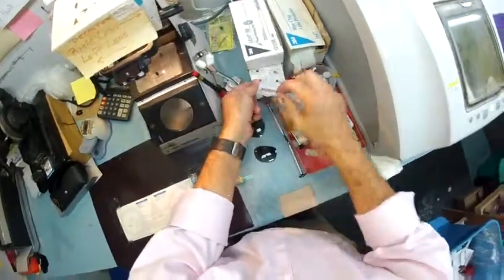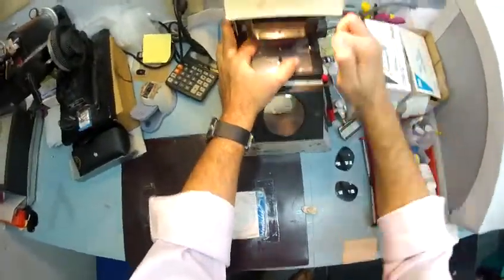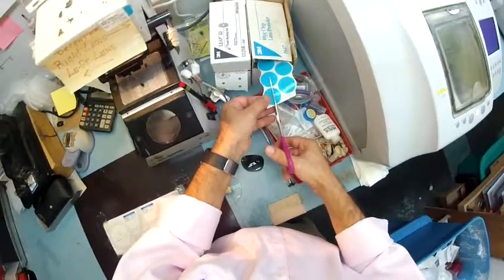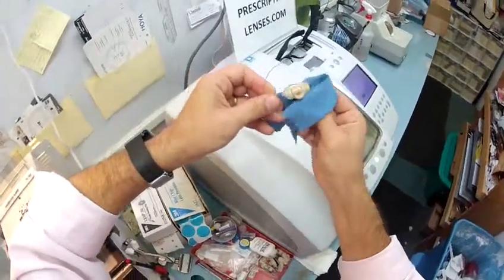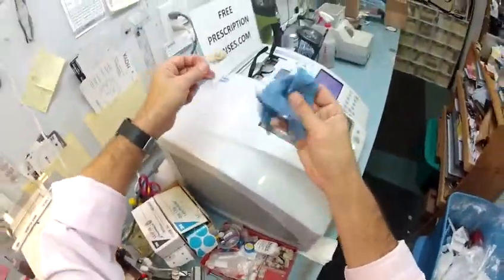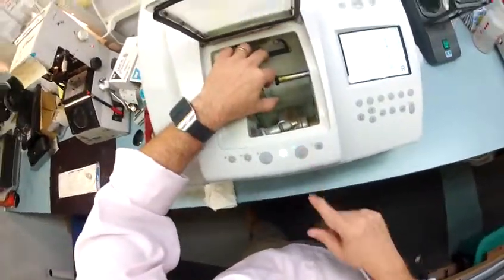I'm going to do the same for the left lens — pull the sticker off, put it on the block, pull the tape away, and stick it on the lens. The anti-glare coating is also a hydrophobic coating, meaning it hates water — it makes the lens extra slippery. So I'll put another adhesive sticker on the backside to prevent slipping while cutting. The nice thing is you'll never need a liquid cleaner — the Ray-Ban cleaning cloth is all you'll ever need. I'll also include one of my own premium microfiber cloths.